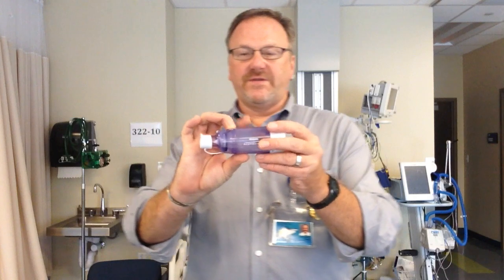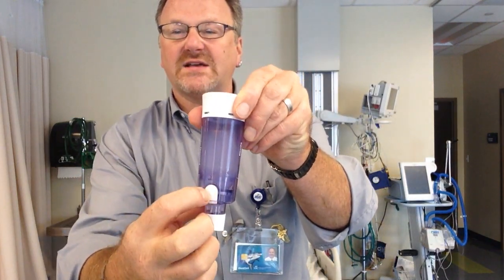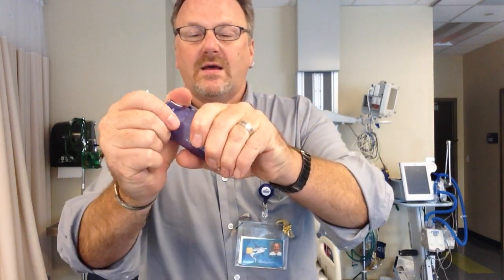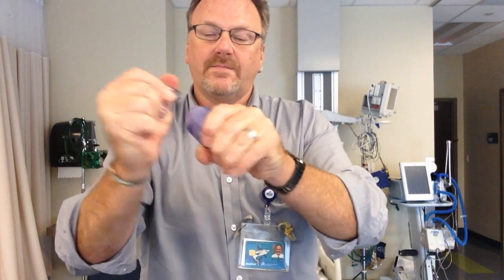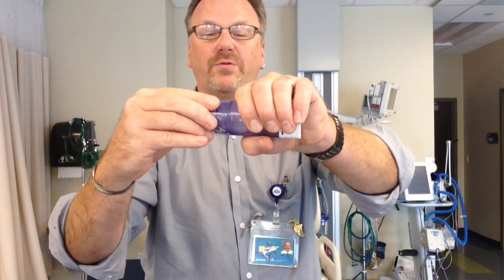Whenever you use an MDI, you should always use a spacer device. This is a spacer device. It has a valve — an exhalation valve. So when the patient exhales, the gas goes out there and does not come back in. It's called a duck bill valve that forces the air out so the patient does not blow through.